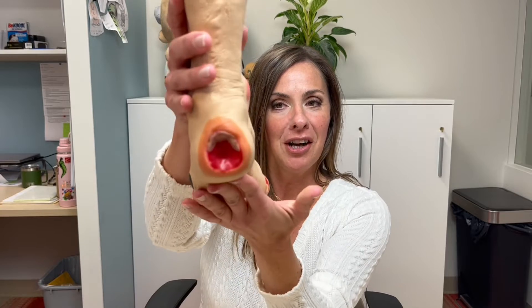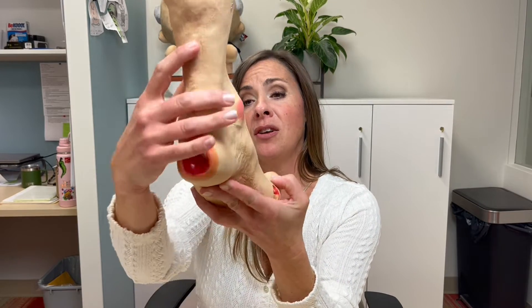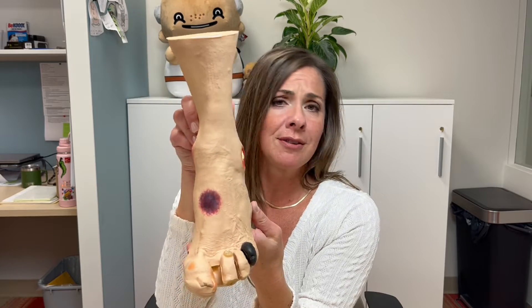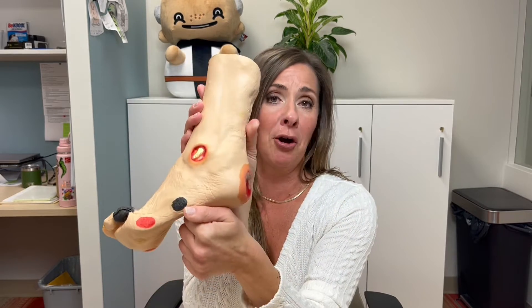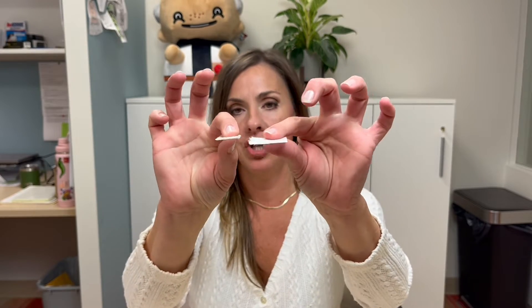On a practical level I'll explain a little bit about how you would use this product and how you would apply it to a wound. I happen to have a decent example of such a wound here. Our poor guy's got a diabetic foot ulcer and also some pressure wounds — all kinds of ailments going on. Our dressing comes in this package; this is our 2x2, and that's what that looks like.